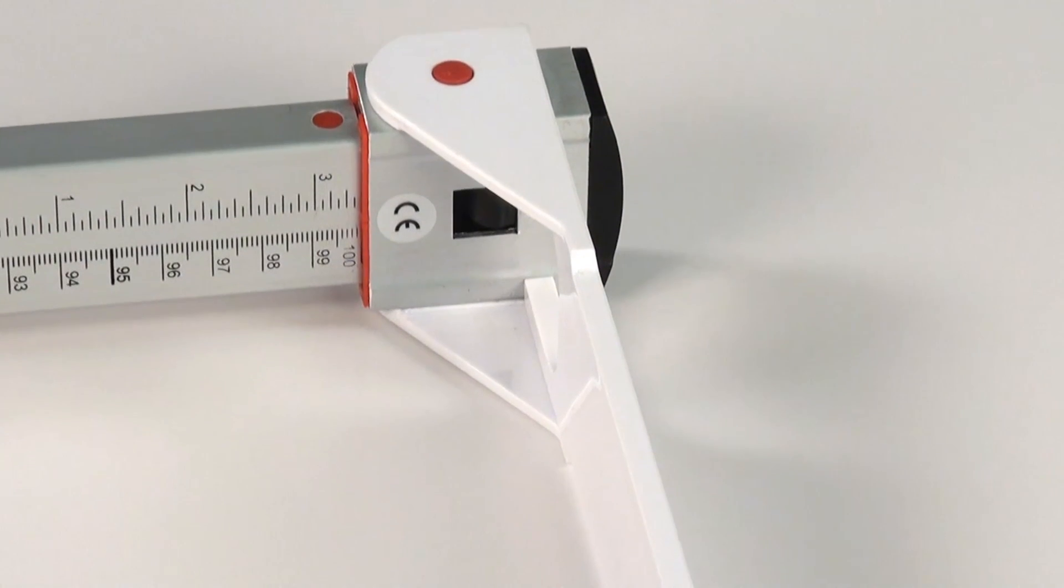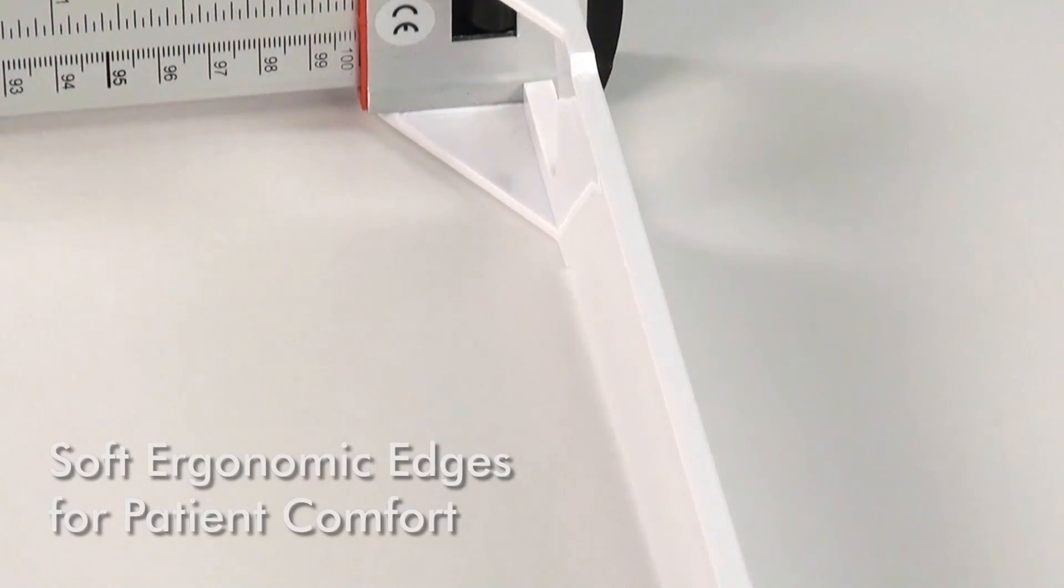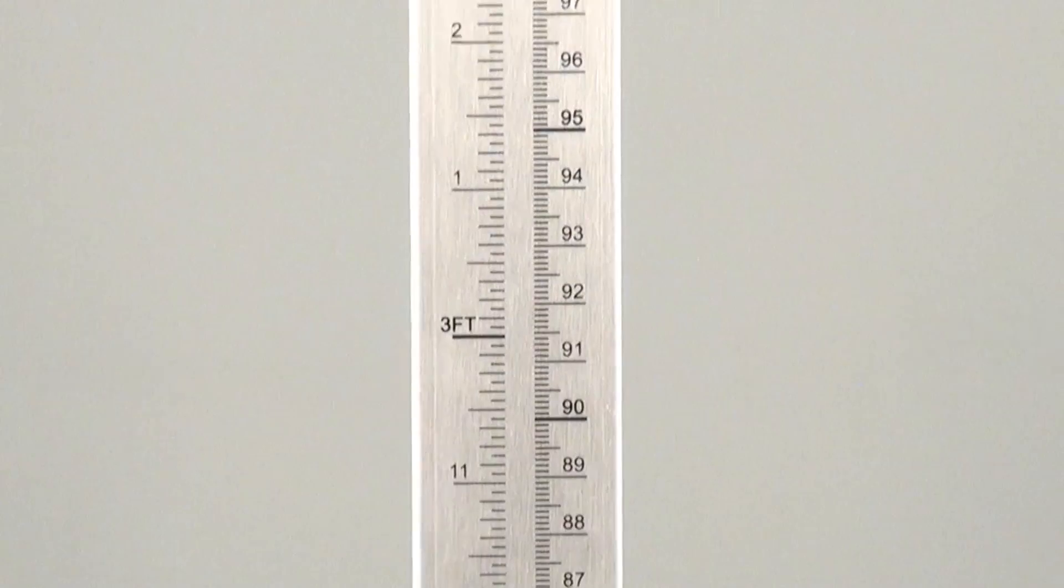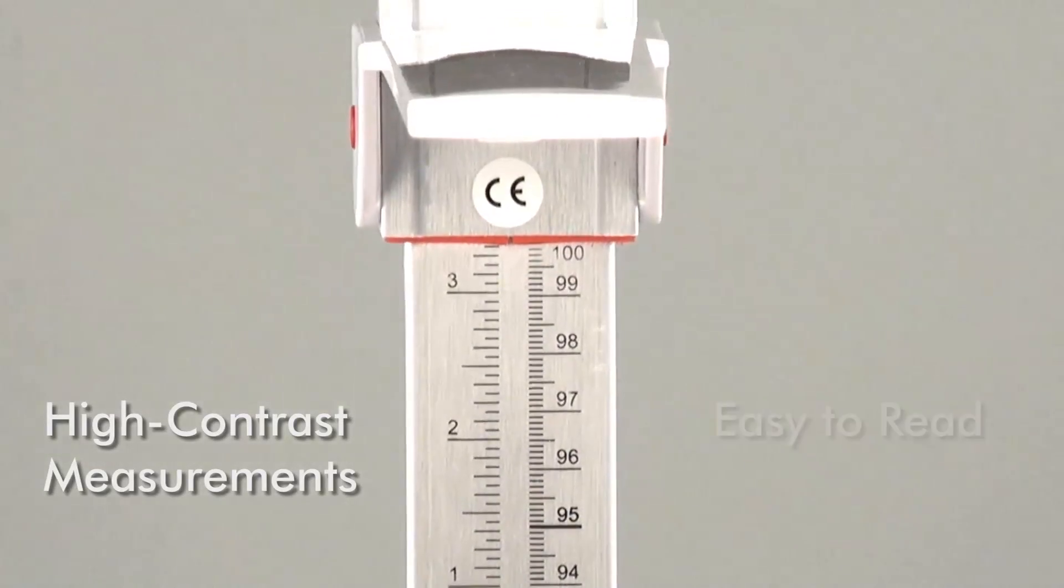The calipers feature soft, ergonomic edges to protect and maximize patient comfort. The light cream color is neutral to complement all medical settings and the high contrast measurements are easy to read.